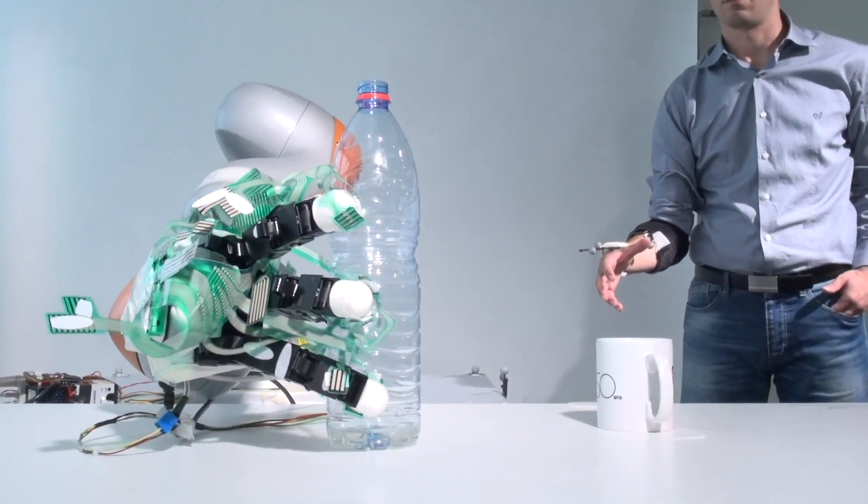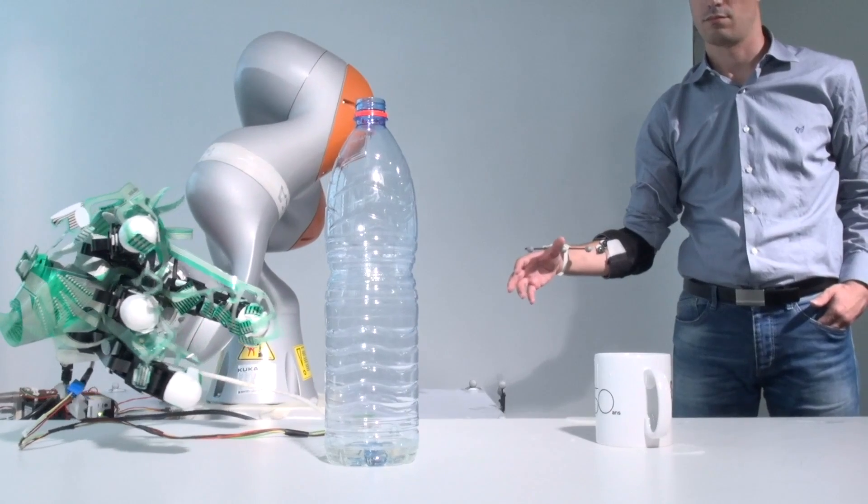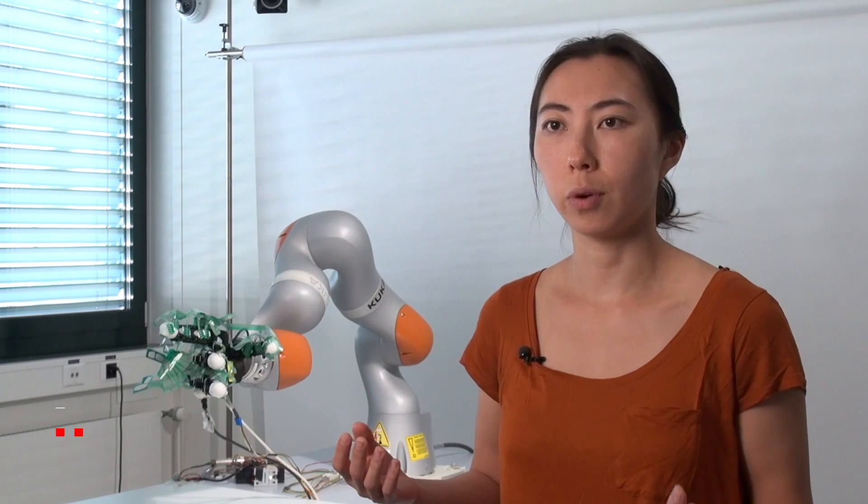Our research is a really good example of shared control, which is a concept that we're very excited about in the field of robotics. That is merging user intention, that of an amputee in this case, with robotic automation.